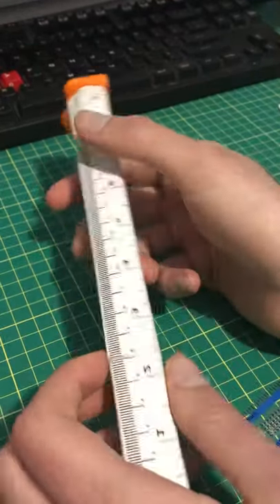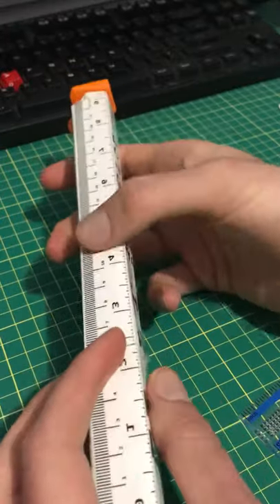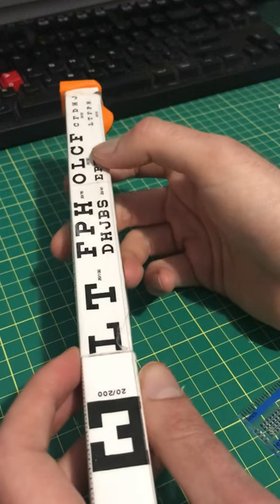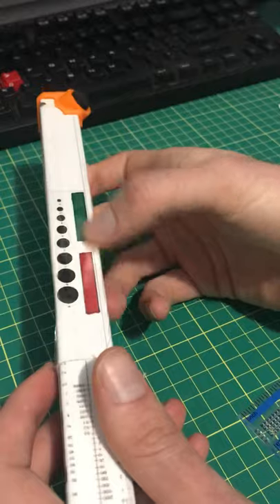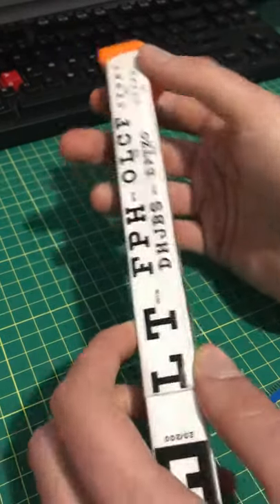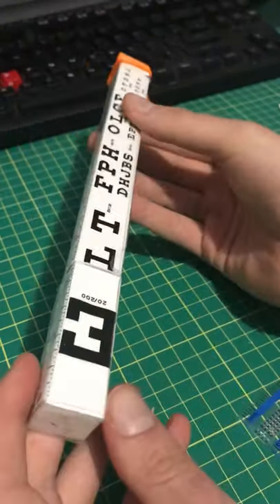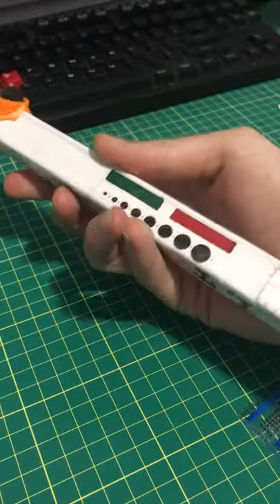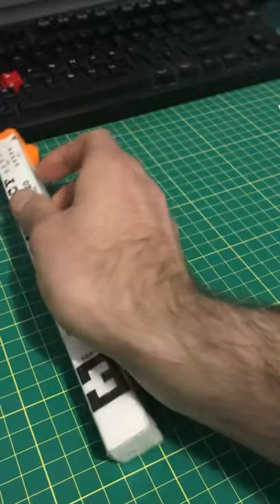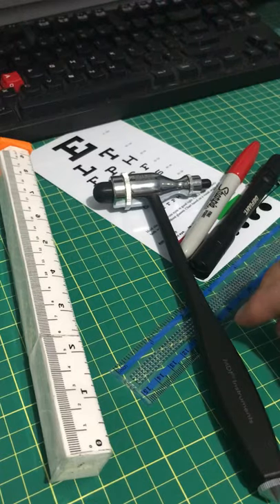Or, this cost me like 50 cents in 3D printer filament. I printed this all off with just your average desktop 3D printer. It was colored in with a Sharpie because it's actually not even a color printer. A piece of rubber, an LED, some batteries and some metal for the electrical contacts — for about $2, if that, you have all the tools in one simple package that I'd normally be fumbling around carrying with me.